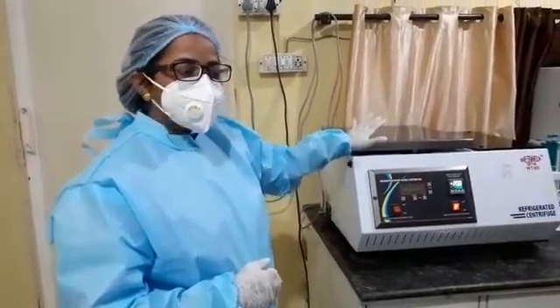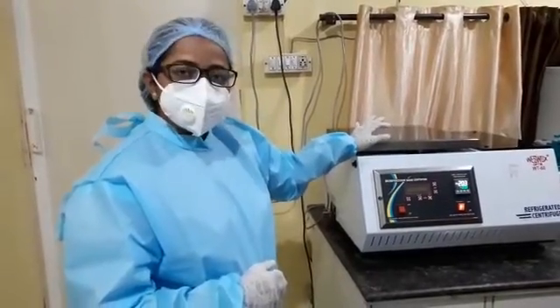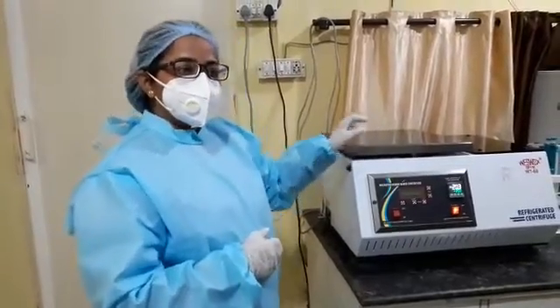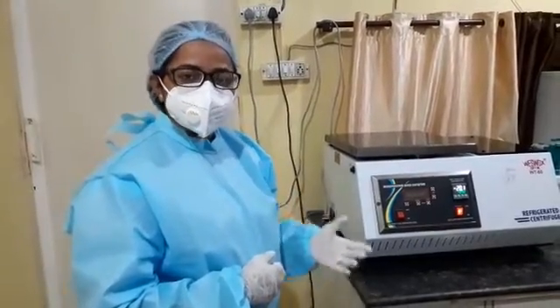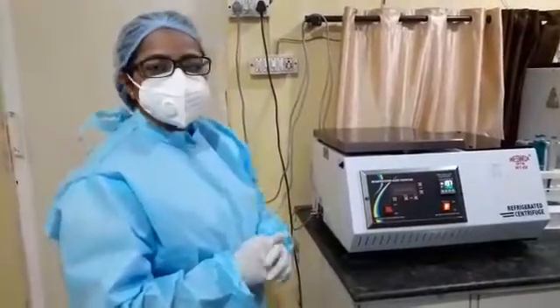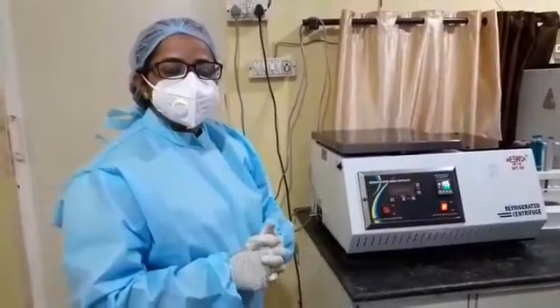In some patients we have seen the platelet concentration reach around 77 lakhs per unit. After using this PRP, the results are much more satisfactory than the previous method. We therefore advise using this refrigerated centrifuge, or cold PRP as it is known.